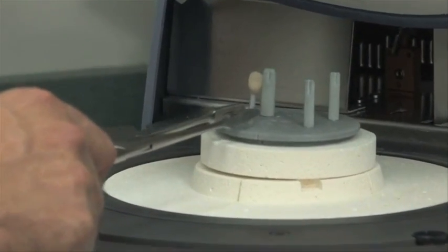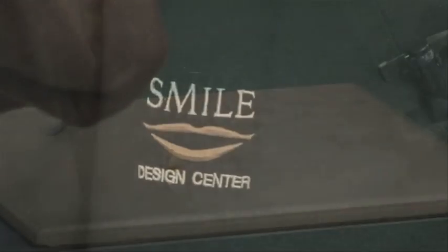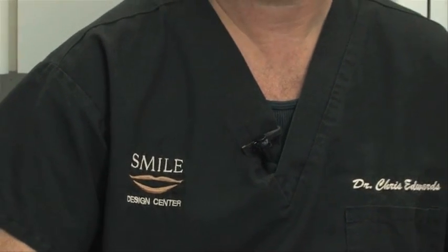It's very hot. We're going to grab it off the curing table and place it on a tile. In just a matter of a few minutes, we will be able to handle it to do a final polishing and preparation of the ceramic for bonding into the patient's mouth.